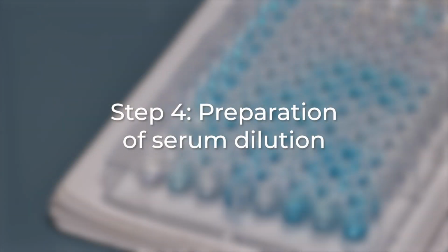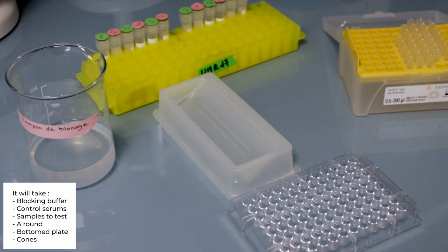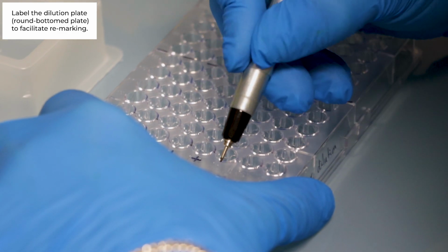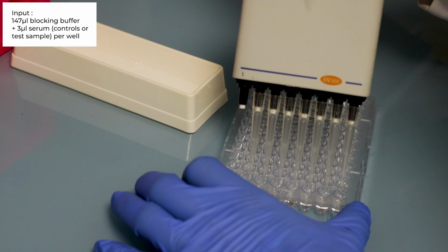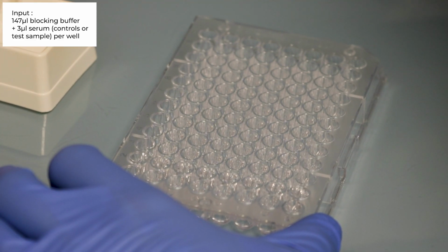Step number 4. Serum dilution. You will need blocking buffer, control serums, serum samples test, a U-bottom plate and cone. Label the dilution plate, a U-bottom plate, to facilitate sample identification. Then place 147 microliter of blocking buffer per well at the exception of wells A1, A2.